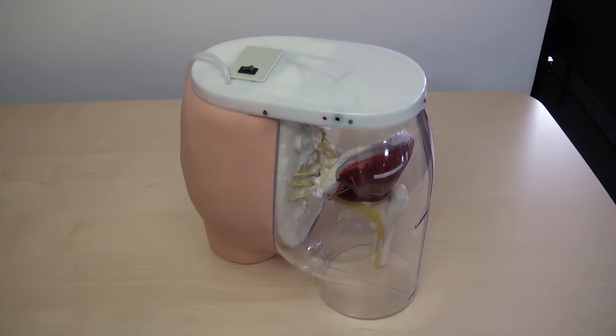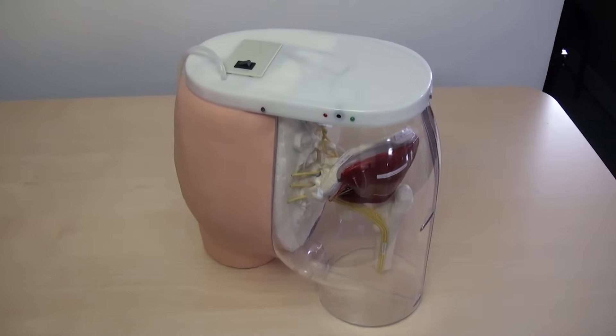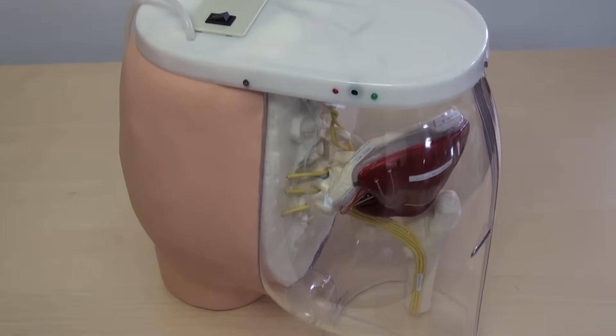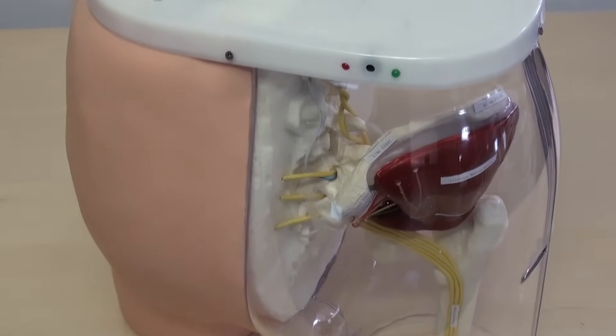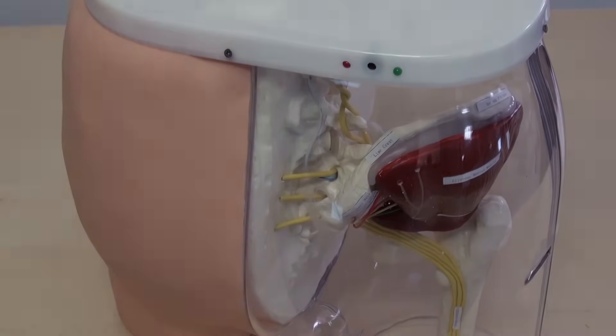The left side of the simulator is transparent, giving students a clear view of internal bones, nerves, veins, and other visual landmarks as they practice locating the proper injection site.